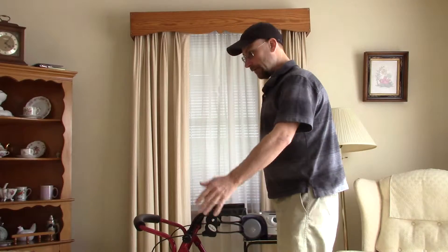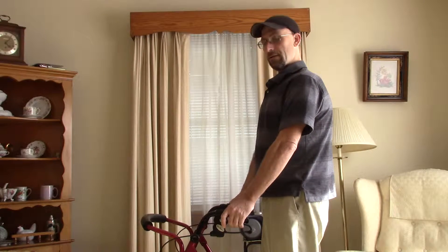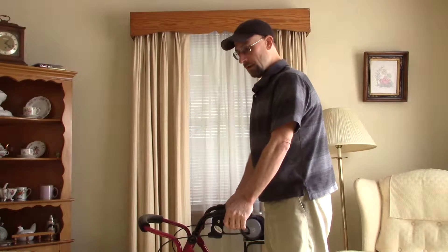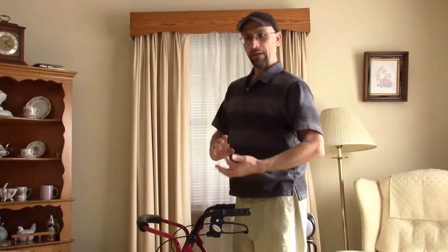When generally using your walker, you're going to want to have your arms out almost straight, with just a slight bend in the elbow on each side, and you want to stand up straight. Now if you're not able to get that right angle, what you have to do is take up the length one way or the other — down or up.